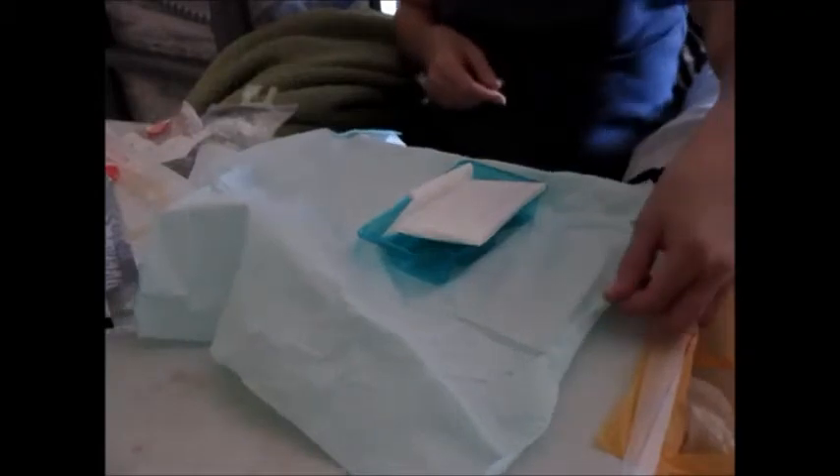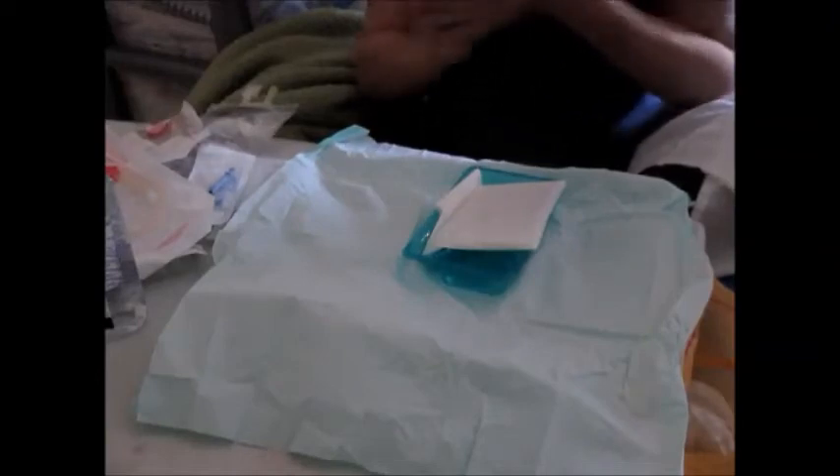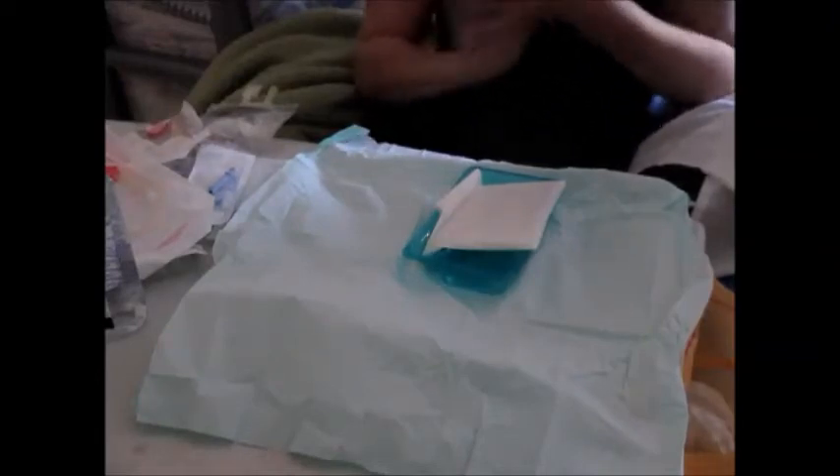If you have a table that allows the bag to stick — like a plastic table — you'll need to turn the bag inside out to tear the strip off to make it adhere. Those on maintenance dialysis have probably noticed nurses doing that. My rubbish goes in the bag. I'll give my hands a quick clean again because I touched the packaging to put it in the bag.